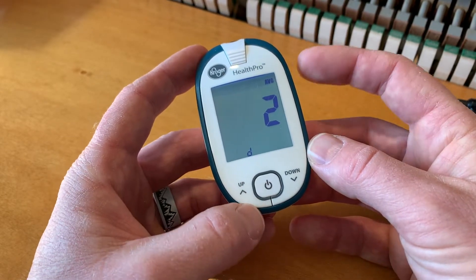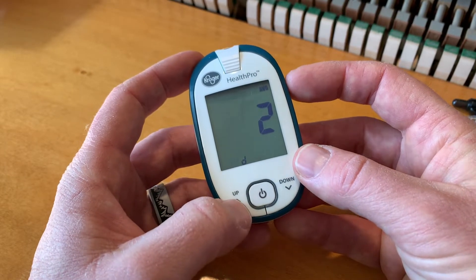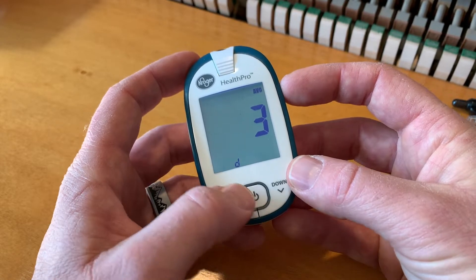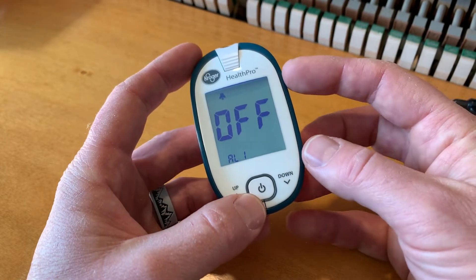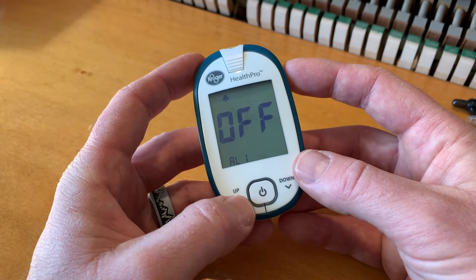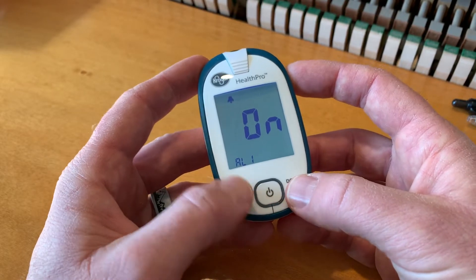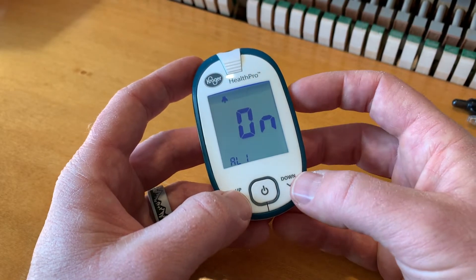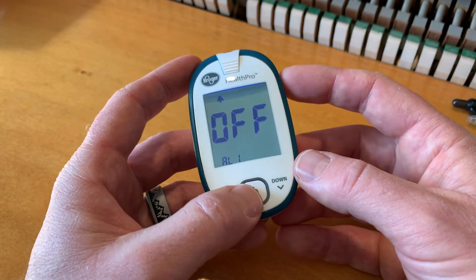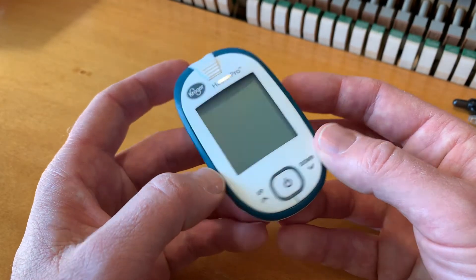Let's hit the power button. This is going to be our second averaging — this is looking for two weeks for us. We hit the power button, and this is going to be our third averaging, so that's three weeks. Next we're going to come to the alarm — just a little alarm that will go off on this Health Pro reminding you to take your measurements. You can hit the down arrow and it'll go on, and then you can set the time. I'm actually going to keep this to off because we don't want this alarm sounding — I'm just going to be doing this every once in a while. And then it goes back into your default stage and turns off.